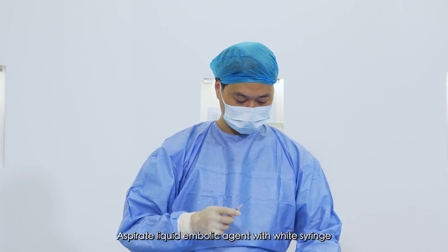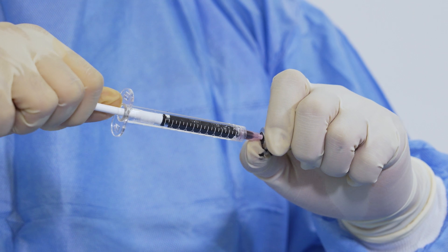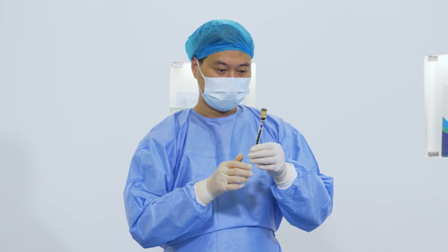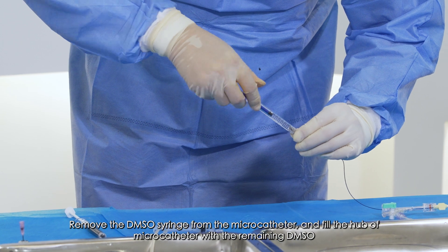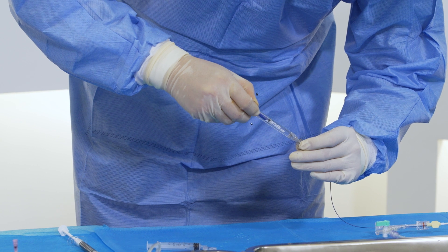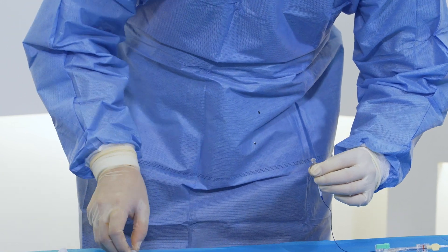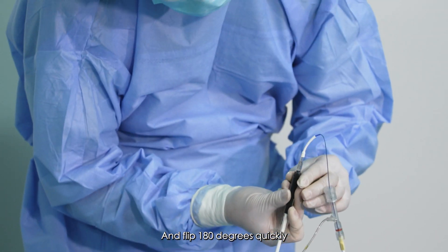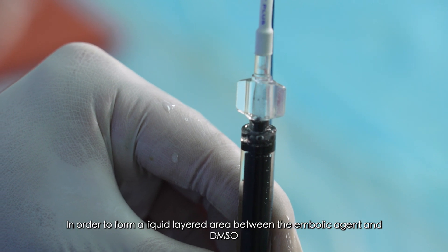Aspirate the liquid embolic agent with the white syringe. Remove the DMSO syringe from the microcatheter and fill the hub of the microcatheter with the remaining DMSO, keeping the hub of the microcatheter vertically. Then connect the embolic agent syringe quickly and flip 180 degrees quickly in order to form a liquid layer between the embolic agent and DMSO.